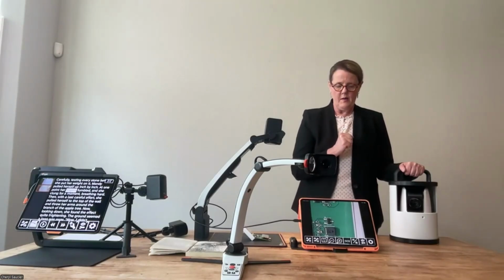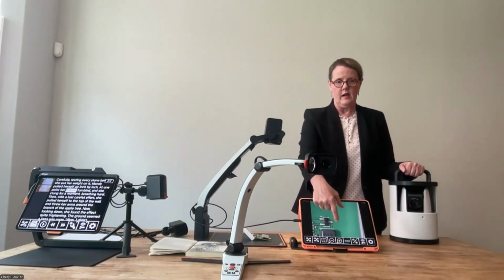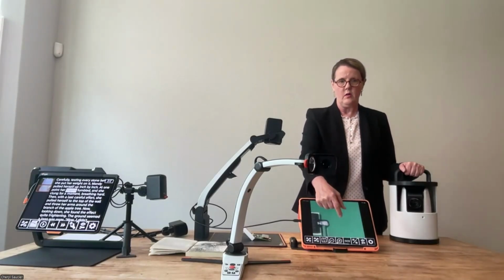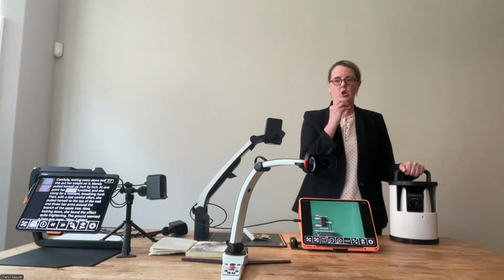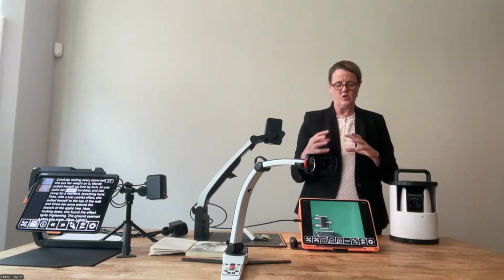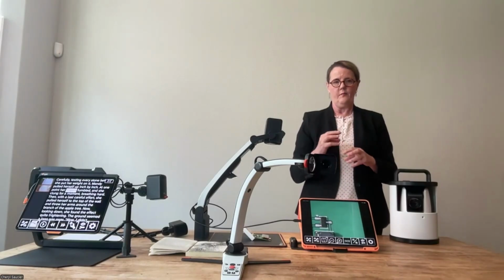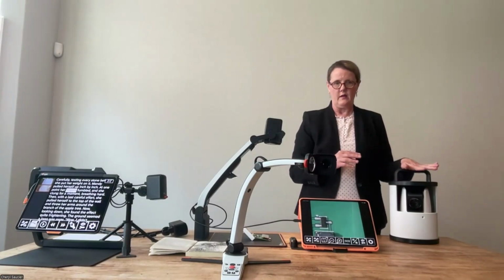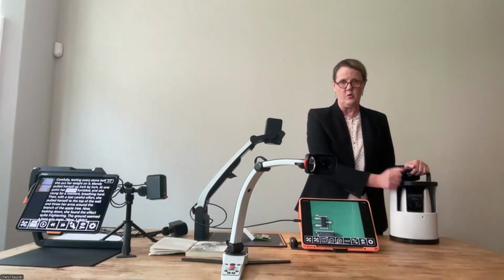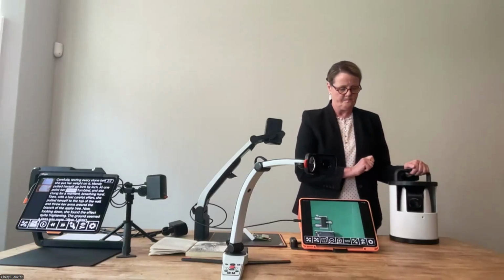But if you think about the ability to pinch and zoom, some of that kind of functionality you will be able to do just to get more individualized magnification options, even though you can't control the camera zooming in and out, if that makes sense.